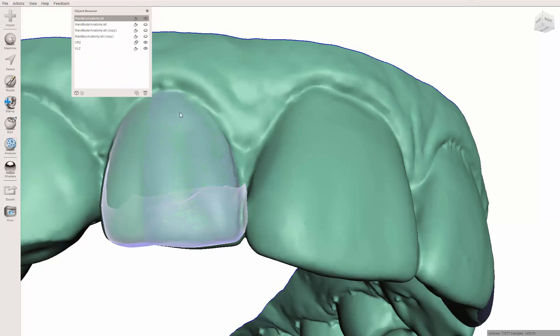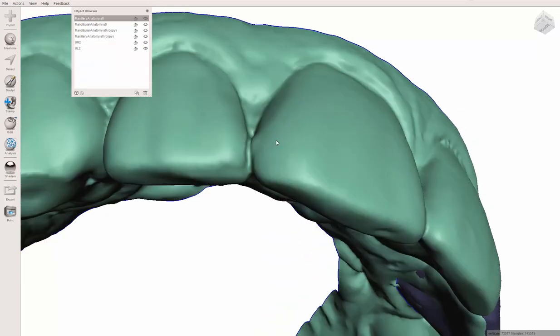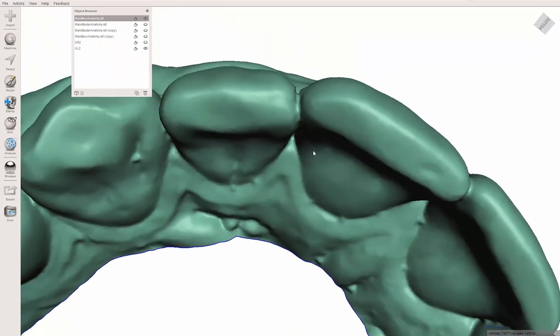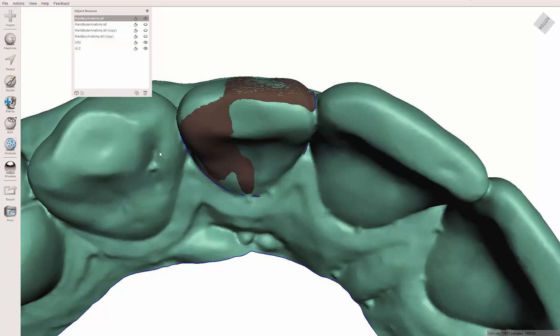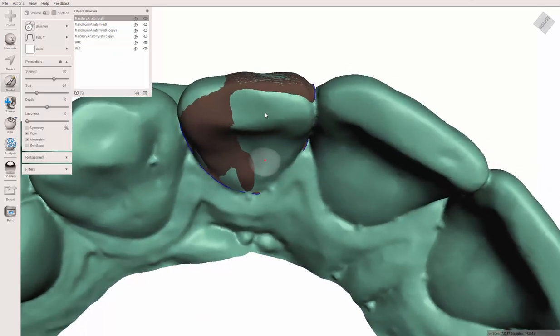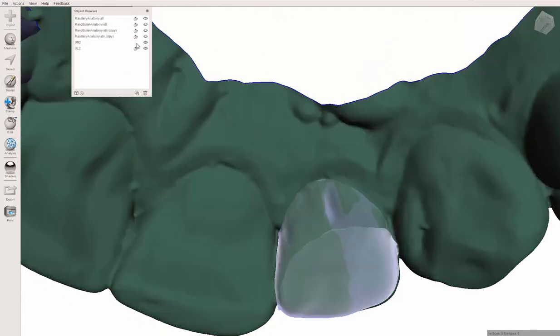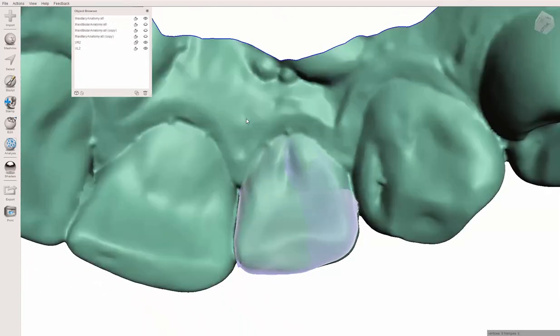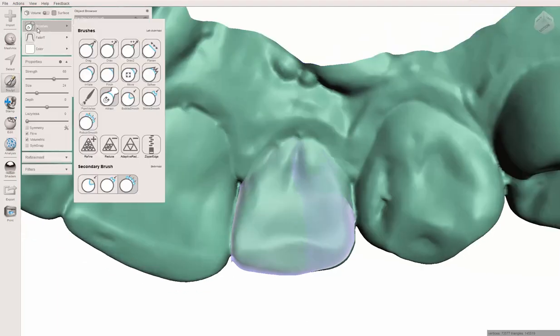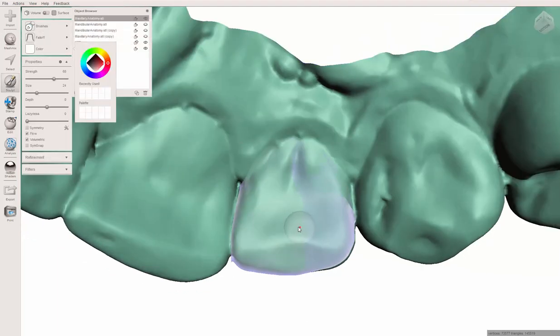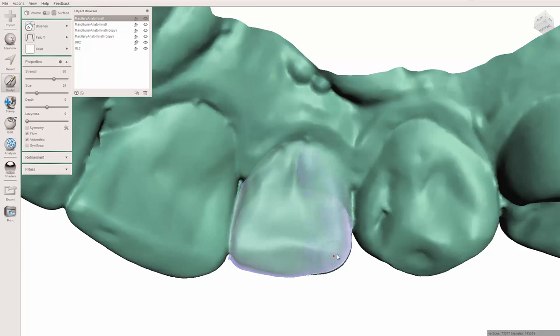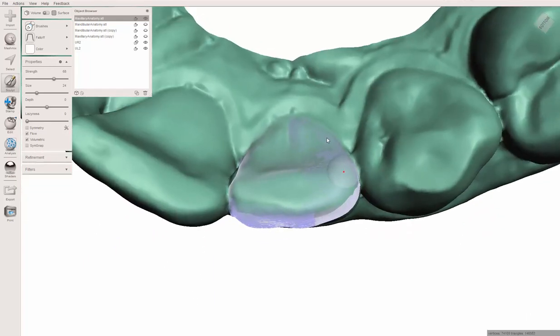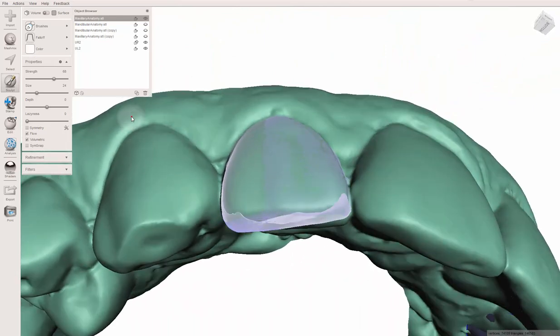I'll show you what this looks like in a moment. It looks pretty darn good. Let's go ahead and close the Sculpt tools. Now let's turn off this and you can see how the mesh lines up. Turn this on, it's out there, so we gotta do that still. Let's turn this to the Attract mode and right where it's blue, we need to highlight that area so the tooth pulls into that spot.